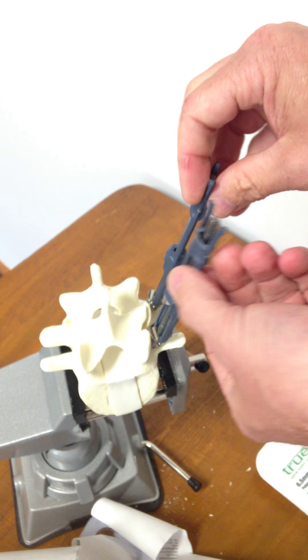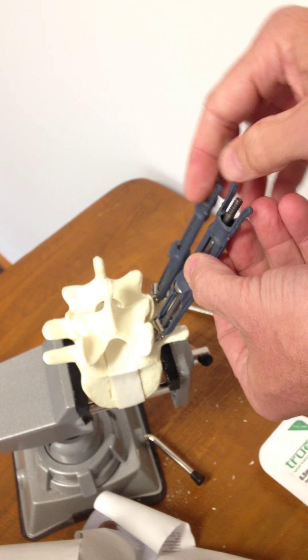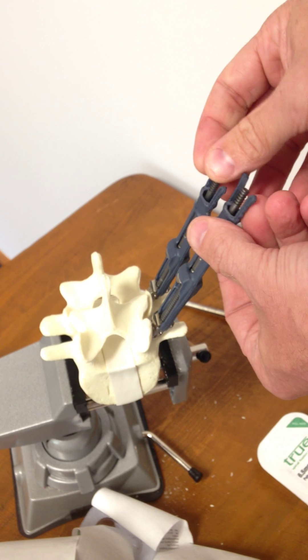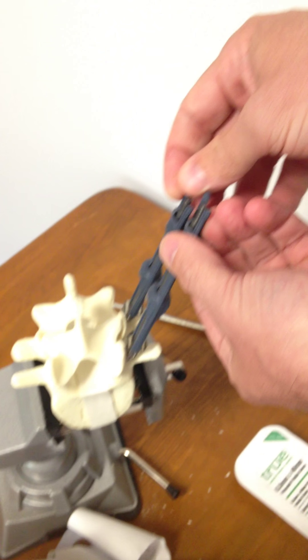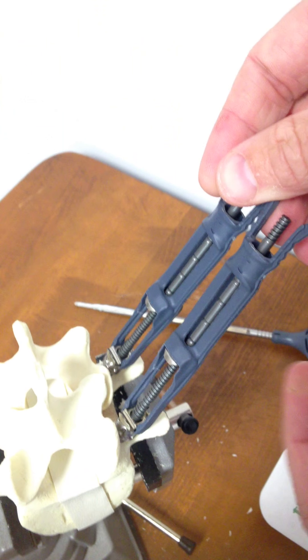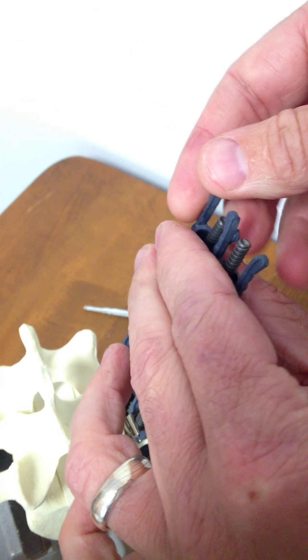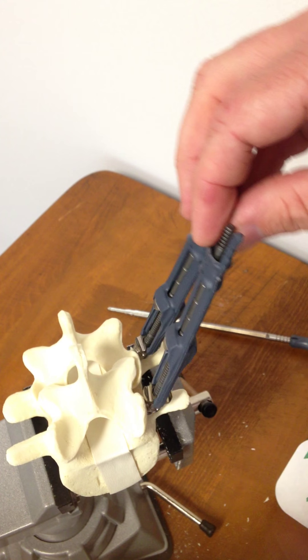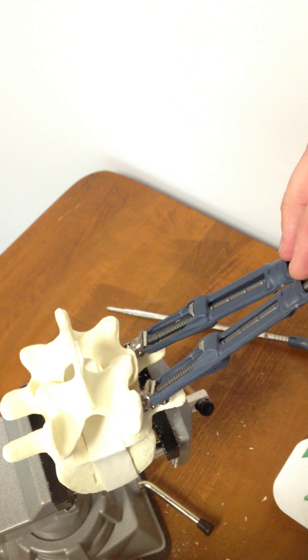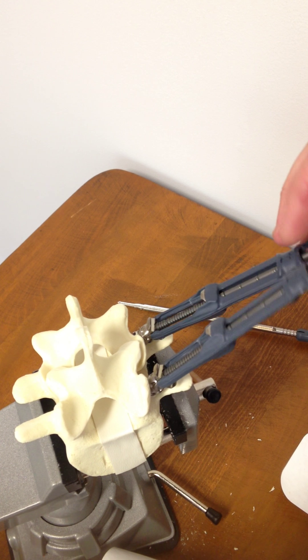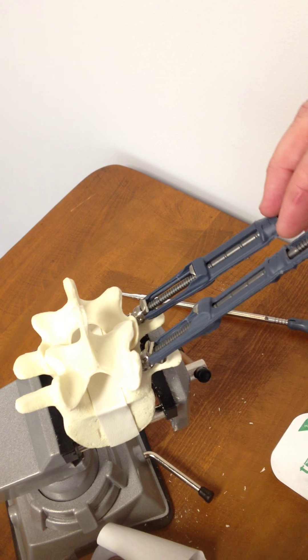Simple delivery. I'm going to orient the axis of these so that they are long ways, and what this will facilitate is our rod delivery. We'll be using this as a guide for rod delivery as we bring these between our caps for final assembly.